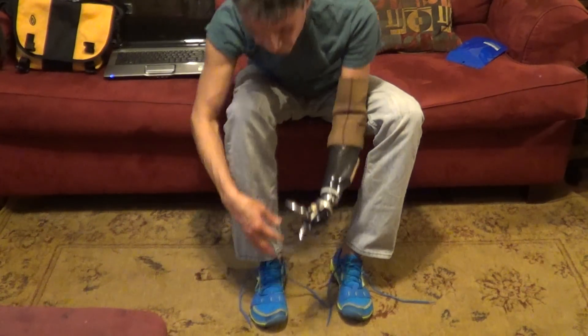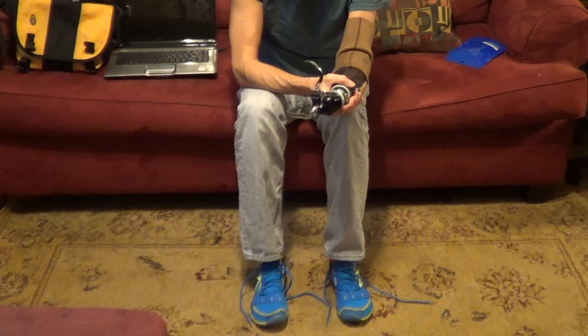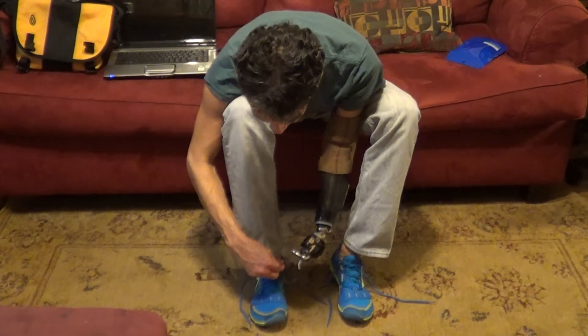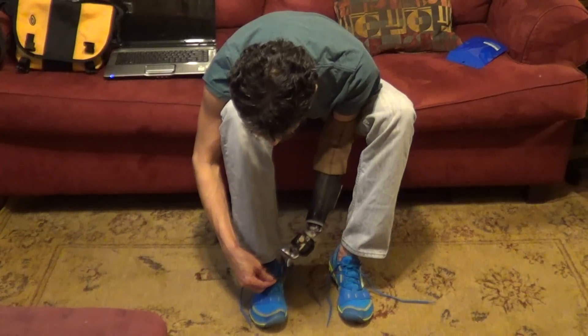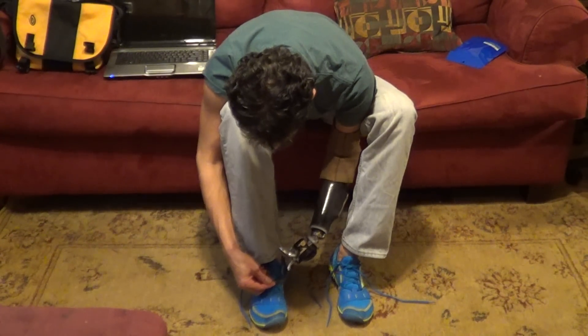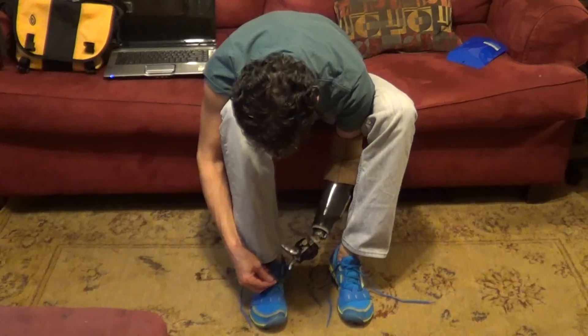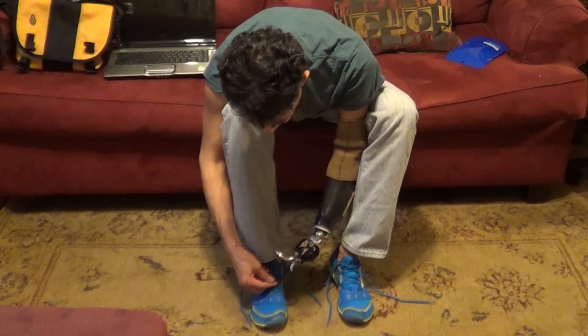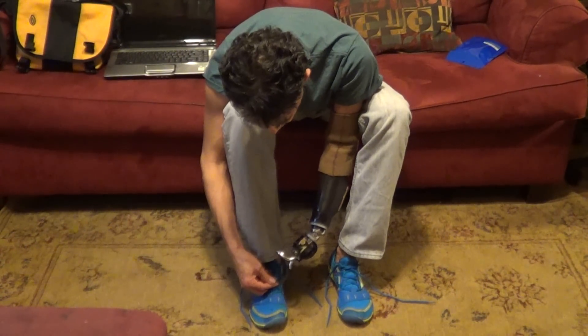Come on. Okay, you open and you close. Close. Open. You make the loop. And then you close. Come on. Do it, Billy. And close. Close, Billy. You can do it.